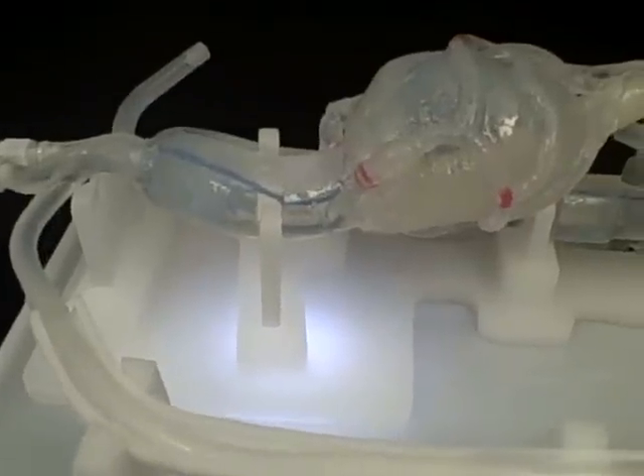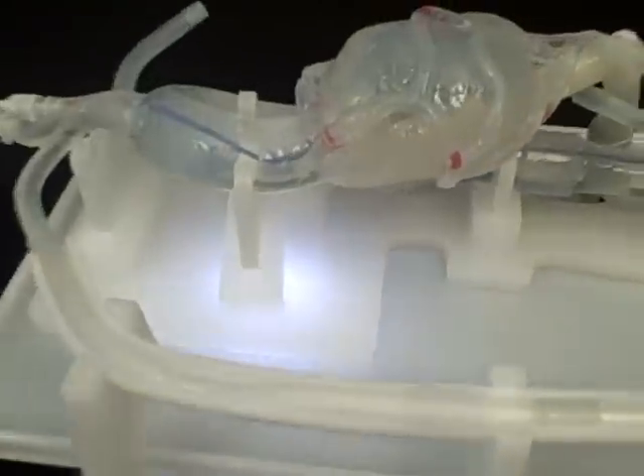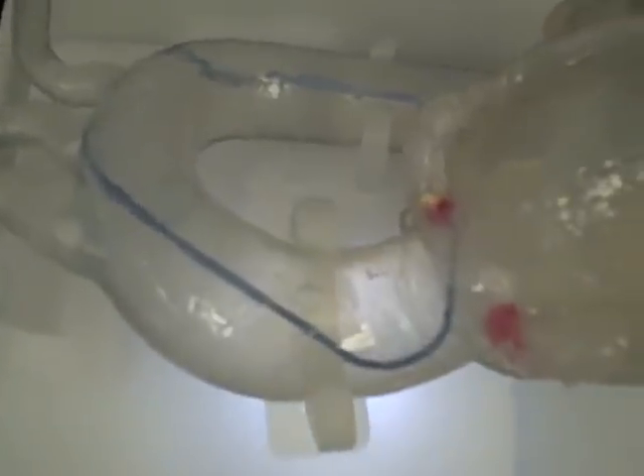You can see a backlight. All that is is a light placed underneath the table, and because of the white urethane that it's made from, it diffuses the light very nicely and allows for good visualization.